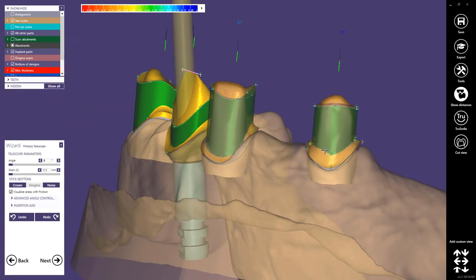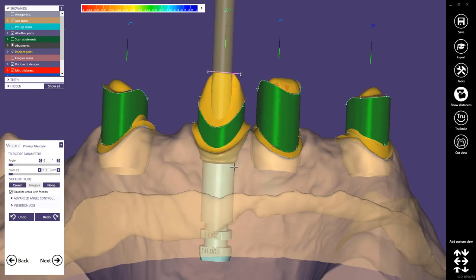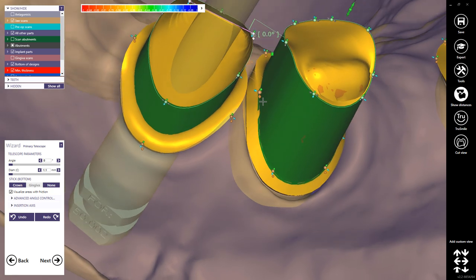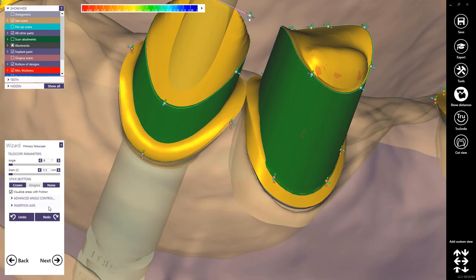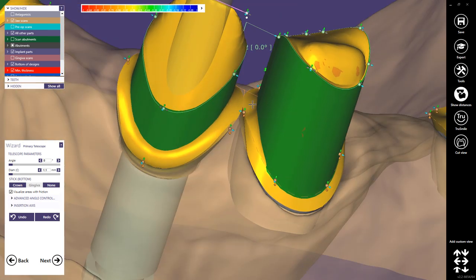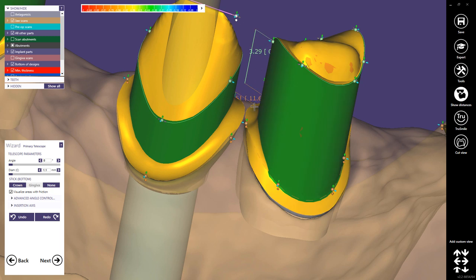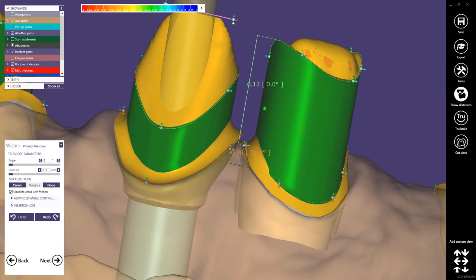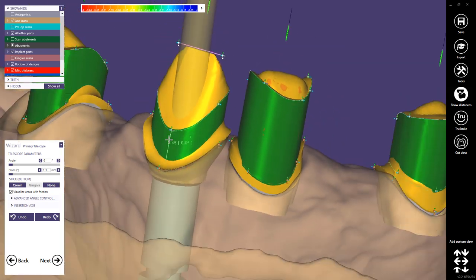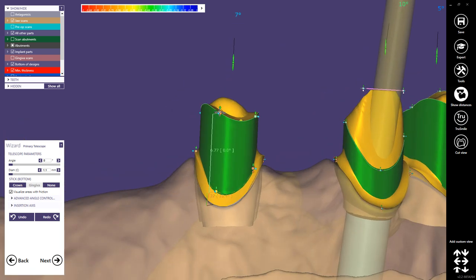In some cases the option with two friction areas can have advantages. Always check with transparency or the cut view tool that they are as thin as possible. Then we start the last stage. Now in the third stage we start designing the core of the telescopes. I usually work very often with Shift — Shift moves three points, Control+Shift moves the entire curve.